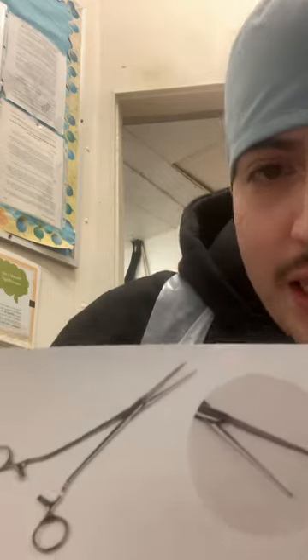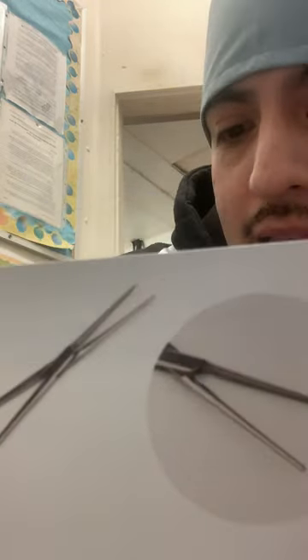For the first flashcard I have this one right here — get a quick look at it. What is the name of this instrument and what type of surgery is this used for? The name of this instrument is a straight Dennis clamp. It is a clamping tool used to clamp. What kind of surgery is this used for? Bowel surgery.